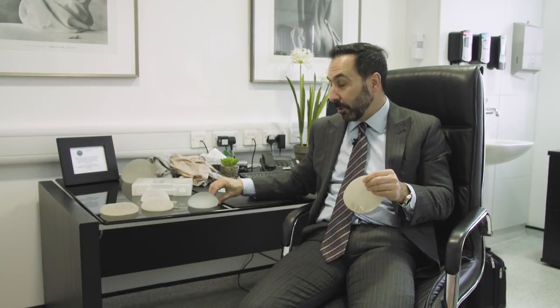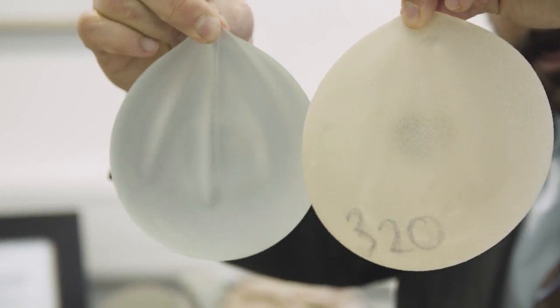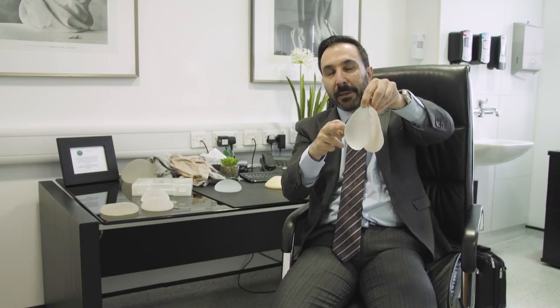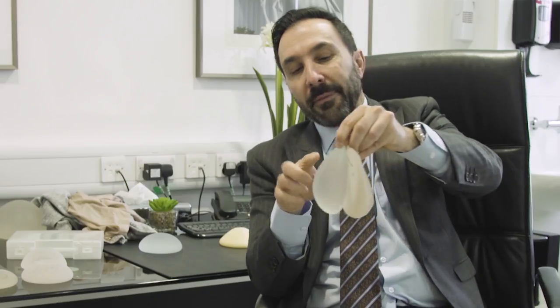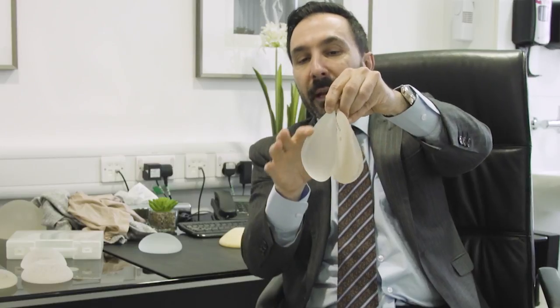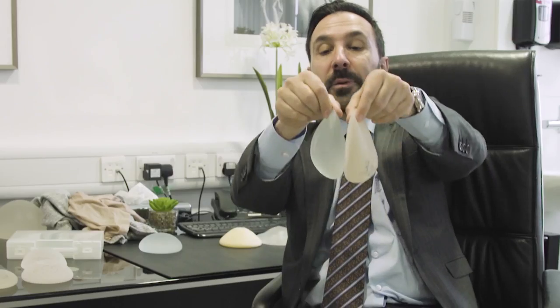Having said that, it's not too different from what the round one gives you when you actually lift it up. When I put them side by side you can see the round one also gives you a little bit of a teardrop effect, albeit not quite as sloped. That's not necessarily a bad thing, because for many ladies one of the problems they have is they feel they've got an empty upper half of their breast. By having a little bit more fullness in the upper half with the round implant compared to the teardrop one, it actually addresses that problem. So the teardrop is not necessarily the most natural one, because even the round implant will fall into a teardrop effect.